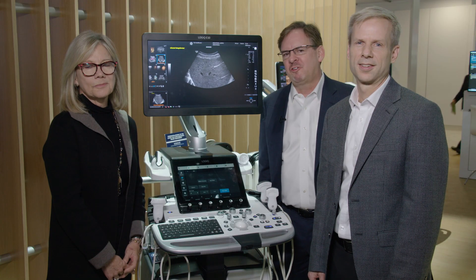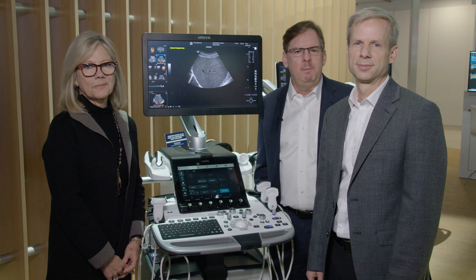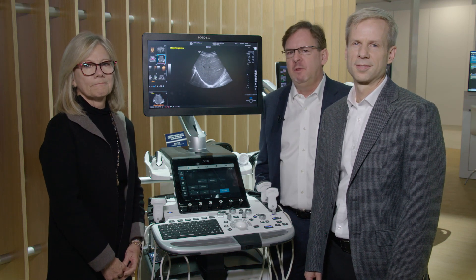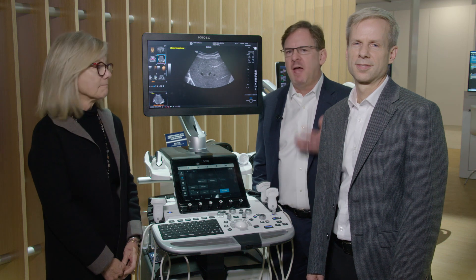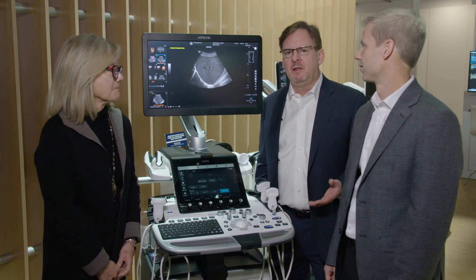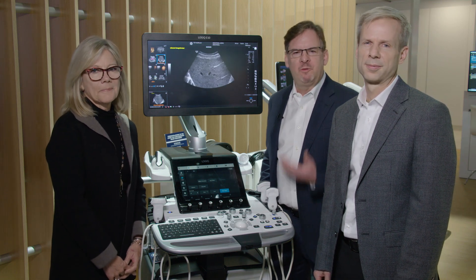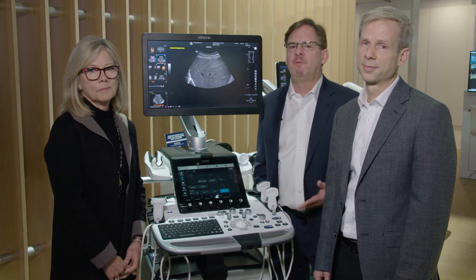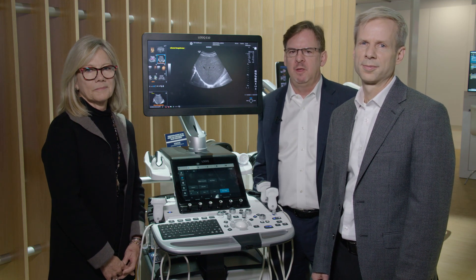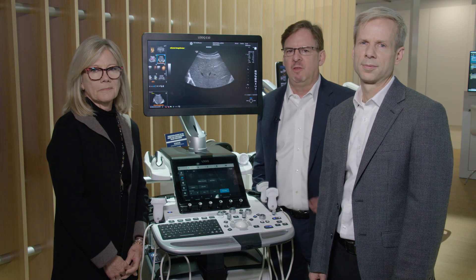The Logic E10 is our next generation ultrasound machine to really meet the challenges of radiology into the future. It's a great imaging machine today — from head to toe, from adult to pediatric, and specifically for the liver. But as we move forward, we don't just need an imaging machine for today — we need a platform for tomorrow. That's what the Edison platform does for us: it keeps us state-of-the-art, not just today, but into the future.